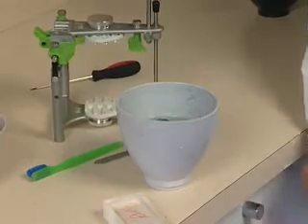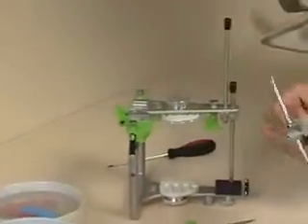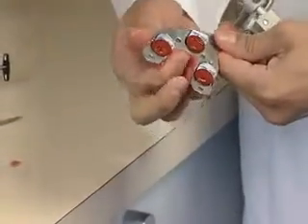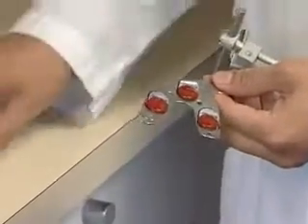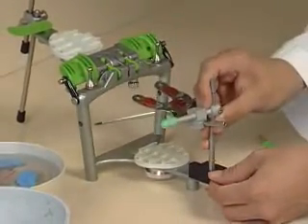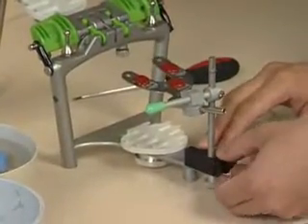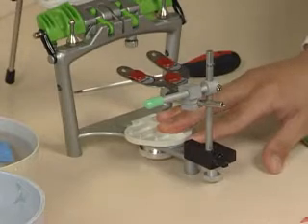He has to prepare his bite fork. We want to take off the Beauty Pink Extra Hard from the lower and just break off the edges of it a little bit. Then he'll put the bite fork assembly onto the articulator. Be sure and put the flat side toward the screw in the front. Notice how, when he did the final tightening, it centered the bite fork.